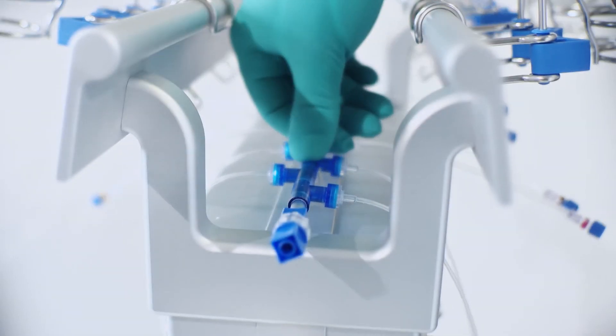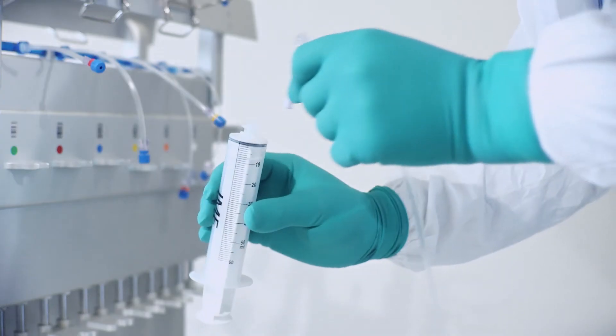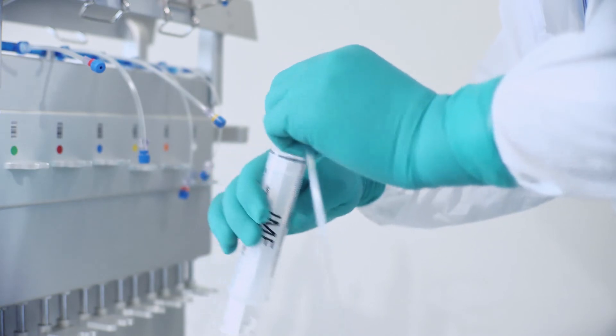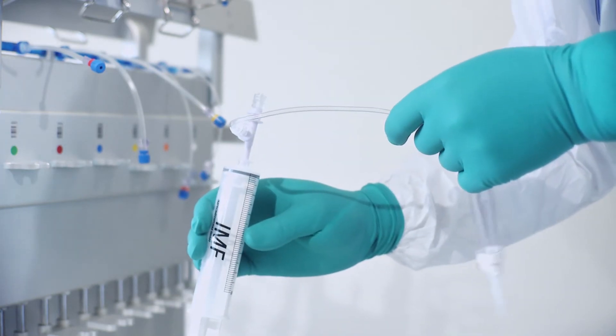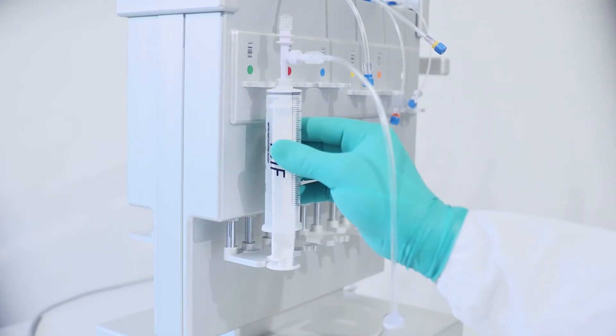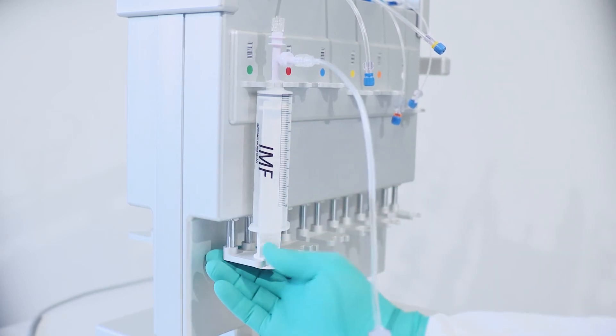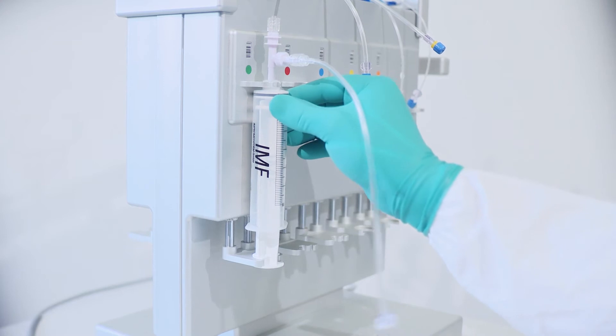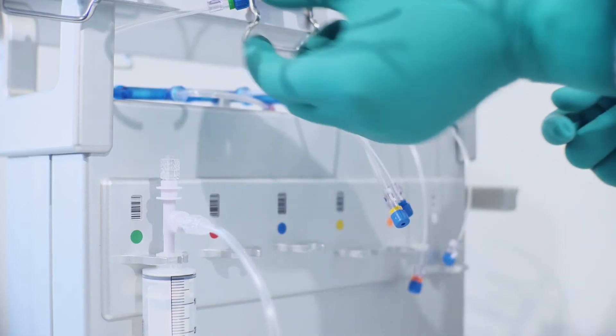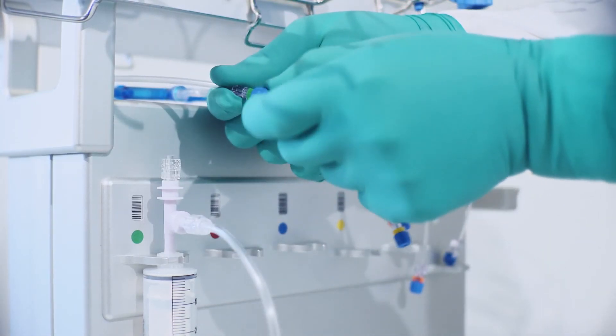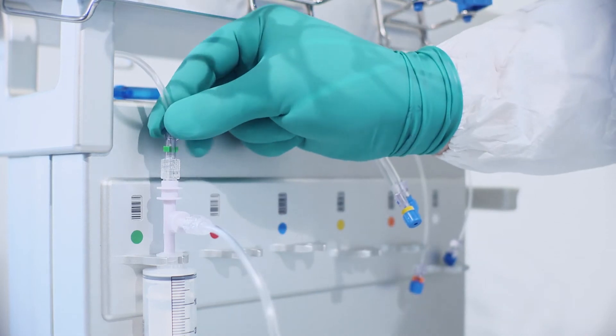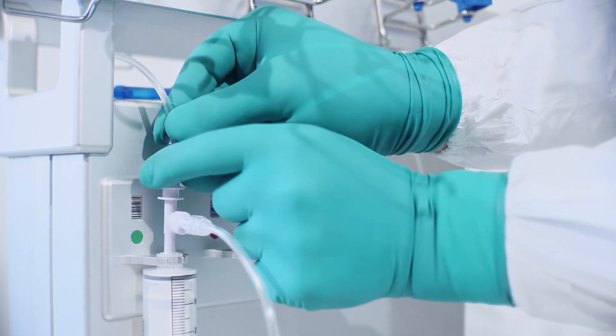Place the central line in the designated clips. Connect the syringe to the connector indicated by the compounder and mount the syringe onto the machine. Ensure the syringe is correctly positioned at the bottom indicated by a click and then push in at the top. Then connect the top of the syringe directly to the central line.